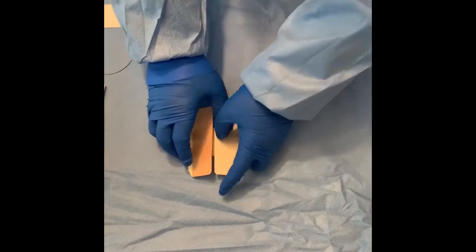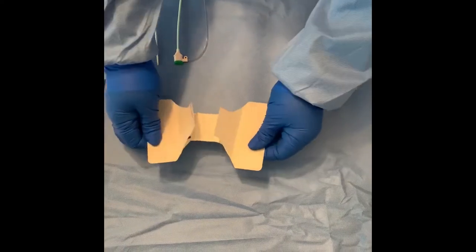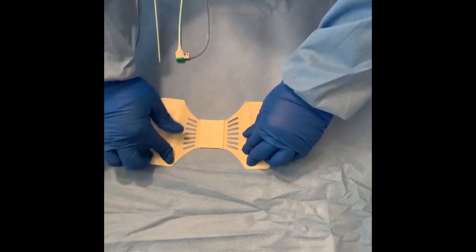Open the wings and break the protective sheet in the center by pulling on the wings from both sides. Fold the protective sheet from the center break back to the corresponding creases created earlier.